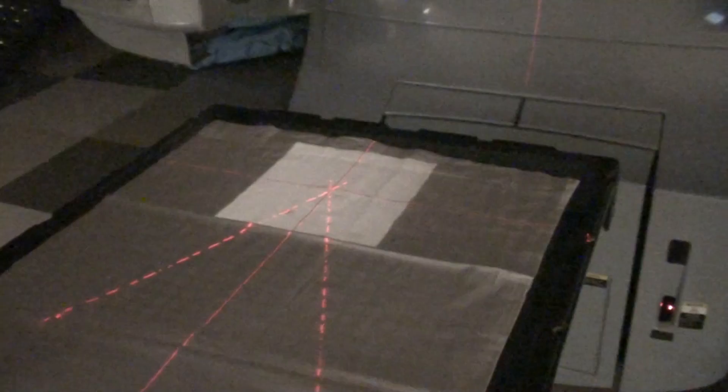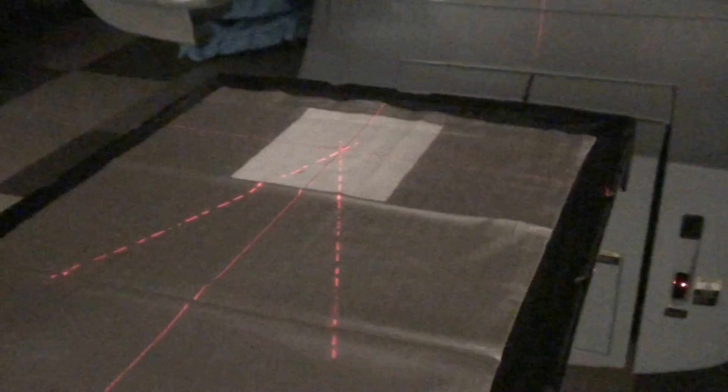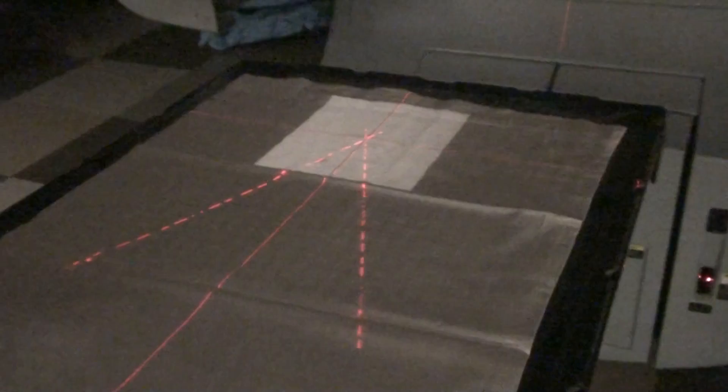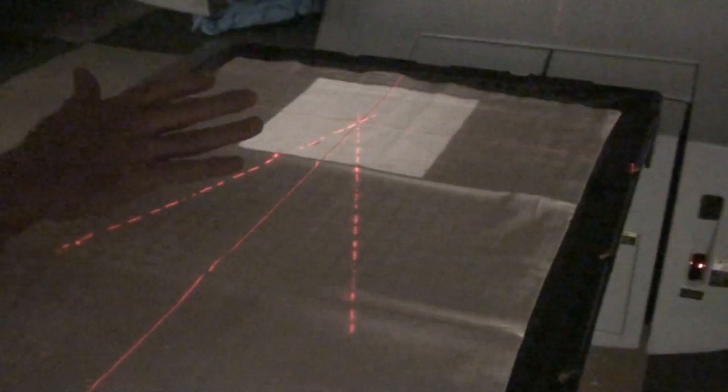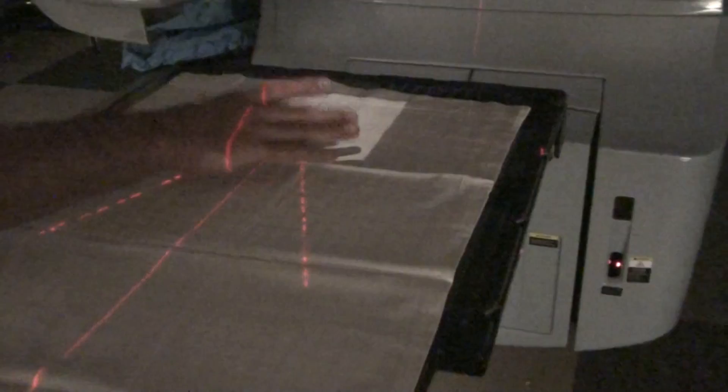The square here represents the radiation field. You have a field size — this field has a width and a length. You also have what are called dual independent jaws. The length will move independently and the width will move independently.